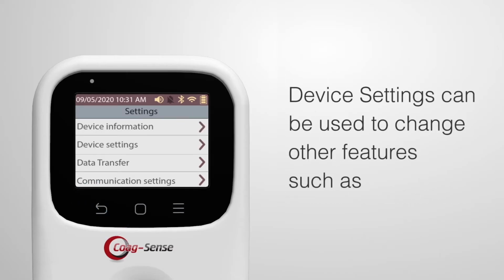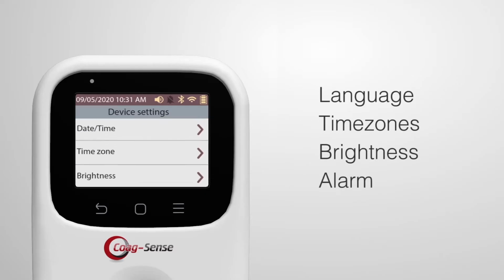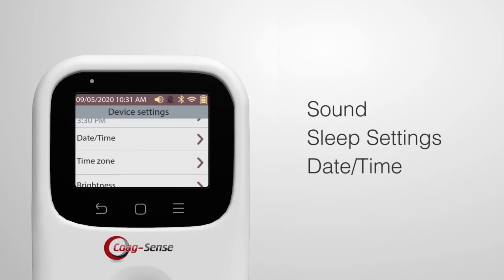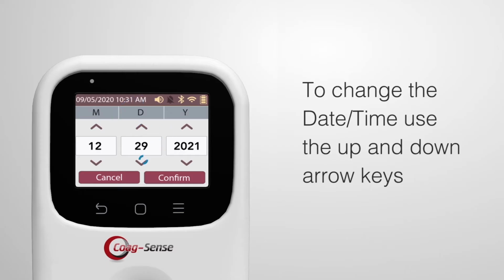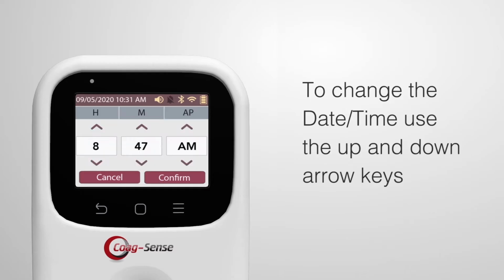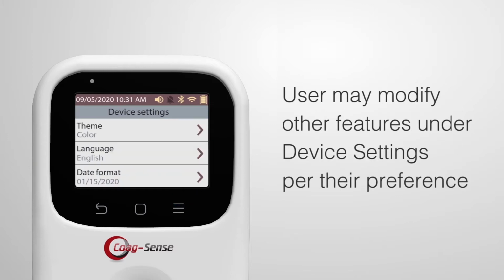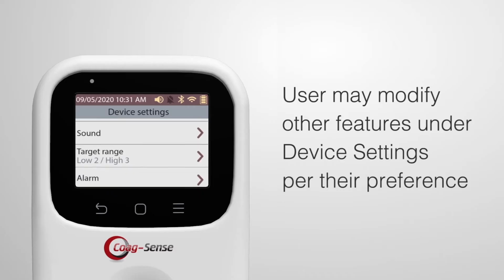Device settings can be used to change other features such as language, time zones, brightness, alarm, sound, sleep settings, and date and time. To change the date and time, use the up and down arrow keys to get the appropriate month, day, year, or hour, minutes, AM, PM, then confirm. User may modify other features under device settings per their preference.